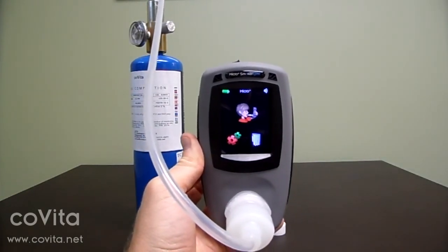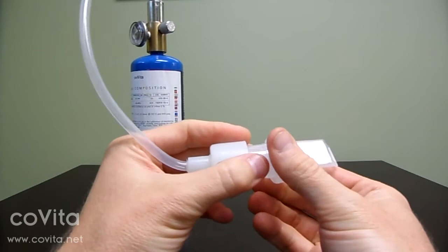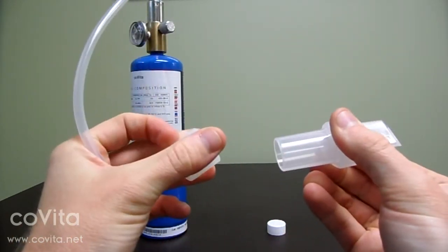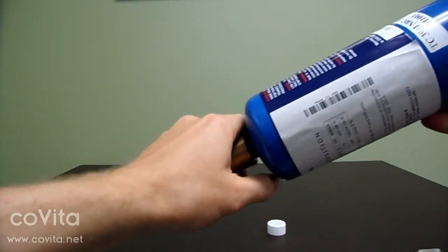Next, remove the D-piece. In order to prevent gas from leaching out, be sure to disassemble your calibration kit when you are finished. Unscrew your regulator from the can. You can leave the calibration adapter connected to the top of your regulator for convenience.